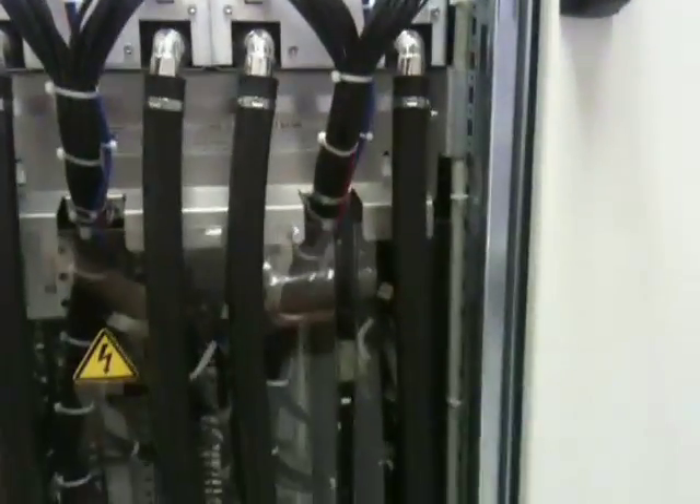Cooling pipes containing cooled water from the chiller cabinet we saw earlier. At the back there are all sorts of connectors, circuit breakers, and goodness only knows what else. Lots of high voltage warning stickers — my guess is that the gradient coils are sufficiently inductive to have a very high voltage.